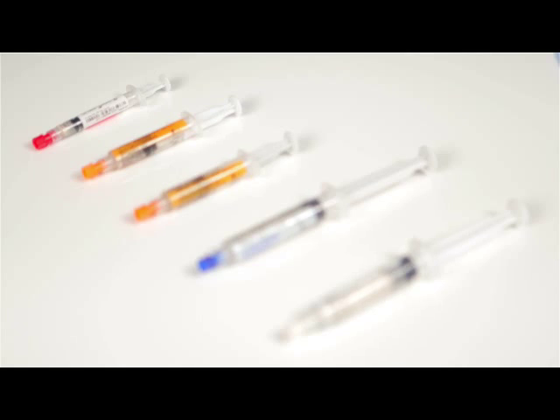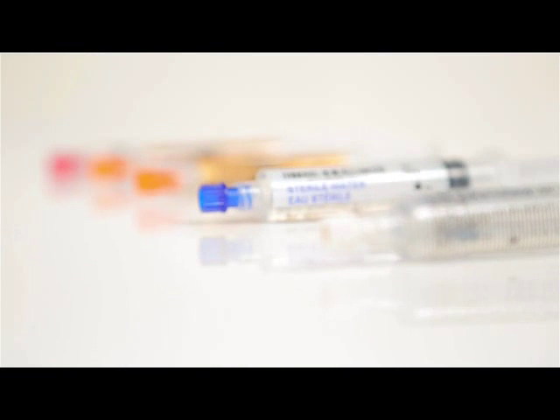We offer a wide range of pre-filled syringes such as saline, sterile water, sodium citrate, citrate ethanol and heparin.